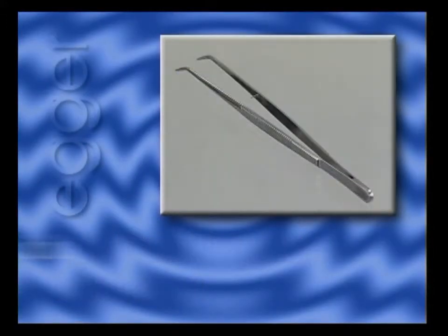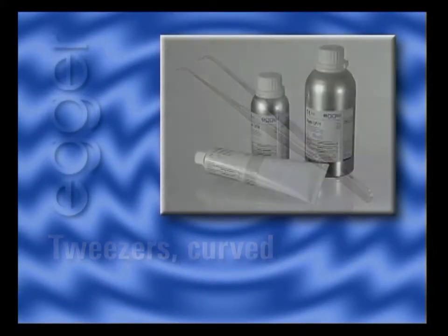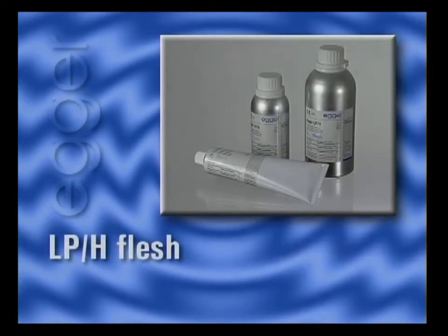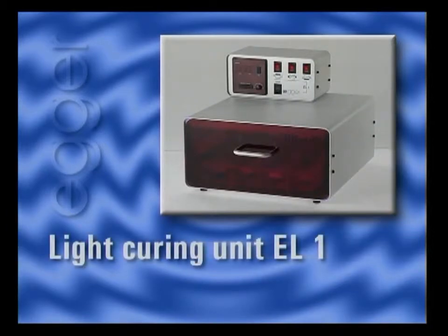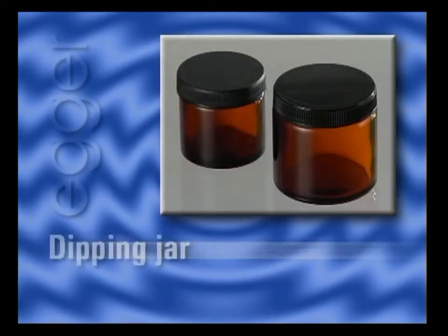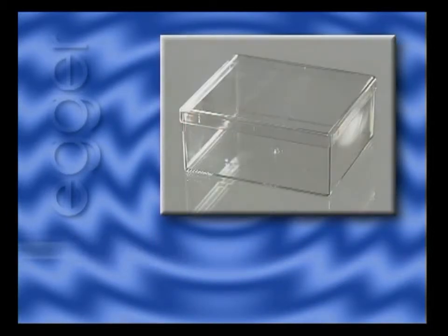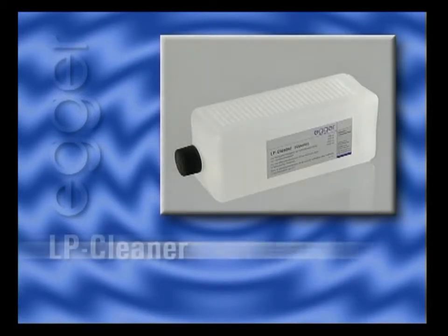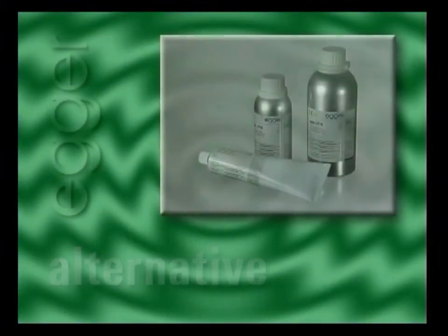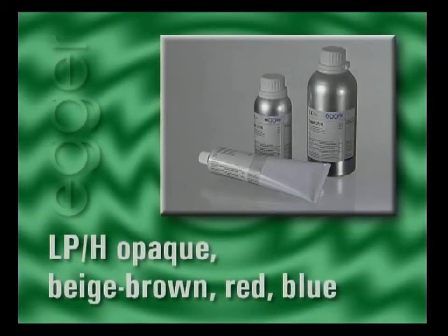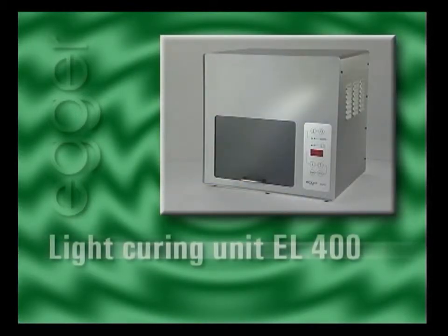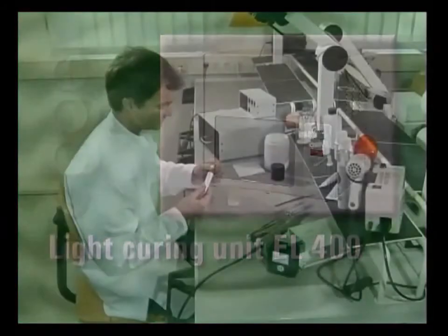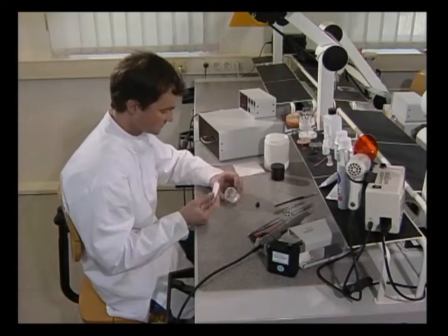These tools and machines are used to produce ITE shell blanks from UV curing material.